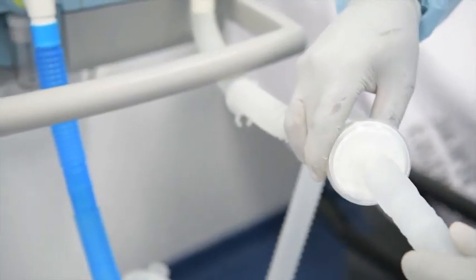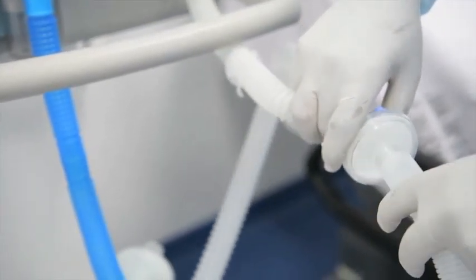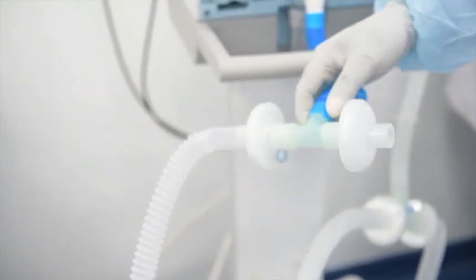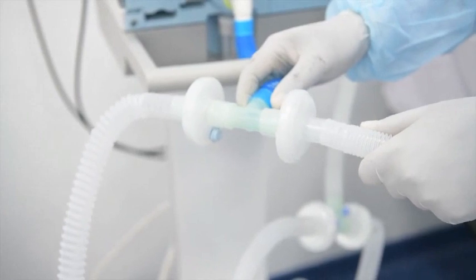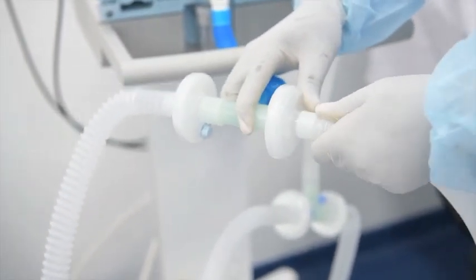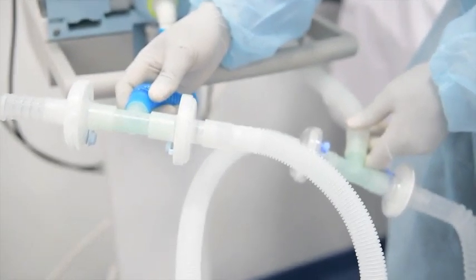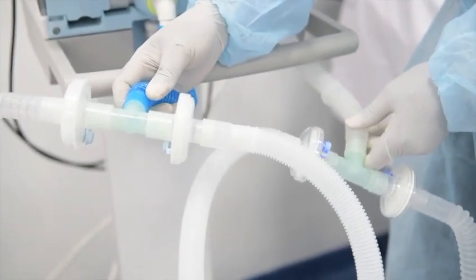So one arm I will connect to inspiration, and the other one on the same patient will connect on exhalation limb. So this is how two patients can be connected to one ventilator.